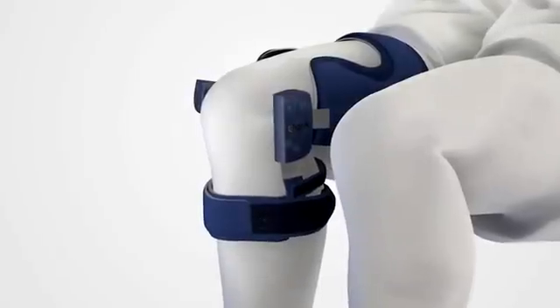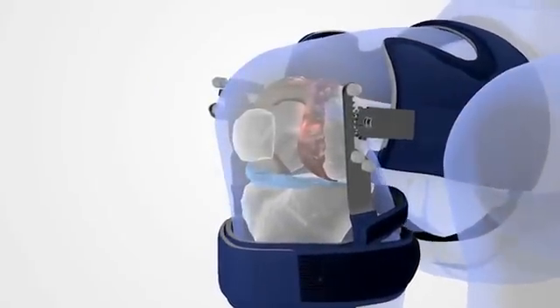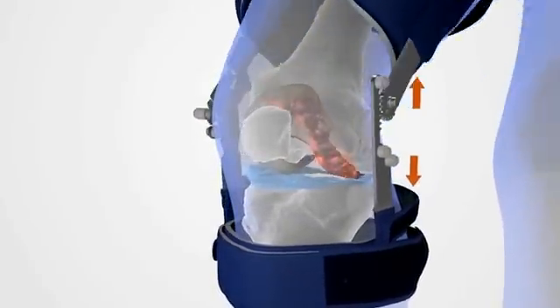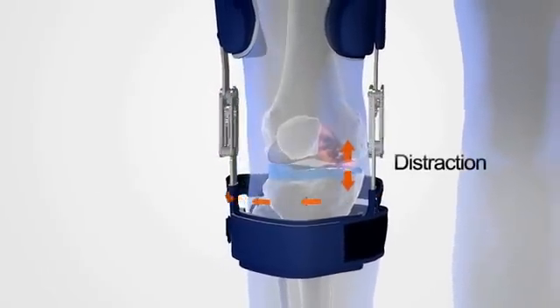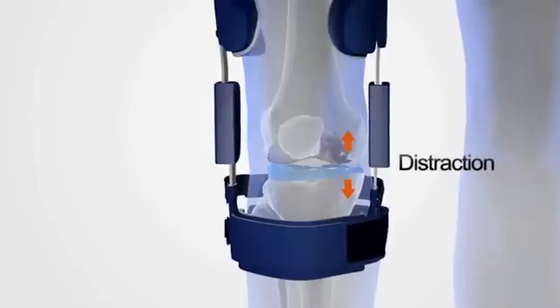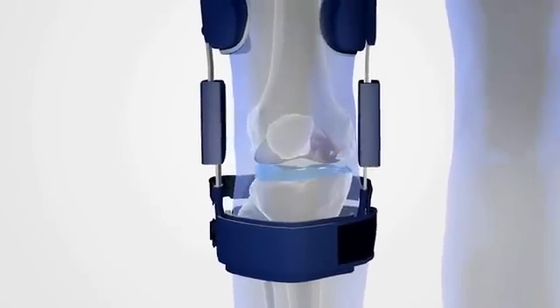Examination of the components shows two toothed rack joints positioned perpendicularly. When the leg is extended, the racks lead to an extension of the brace and drive a distraction between the femur and tibia, thus reducing the pressure on the painful condyle, or the ends of the joints.